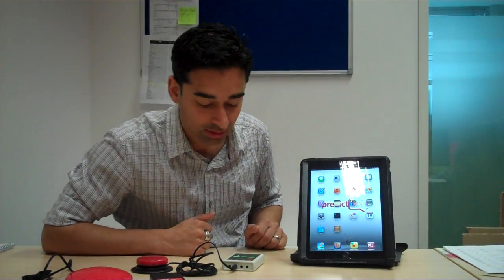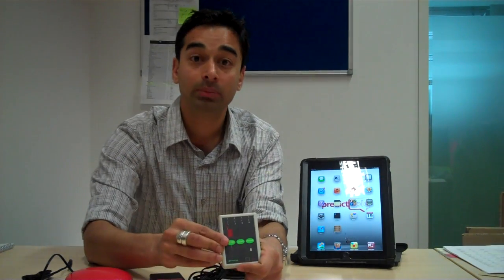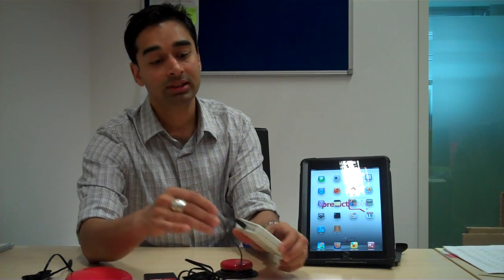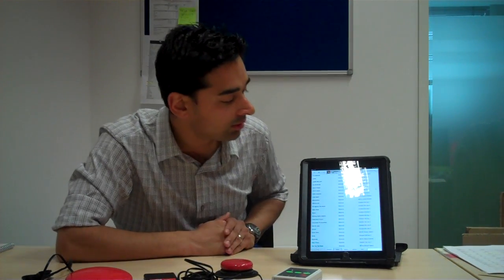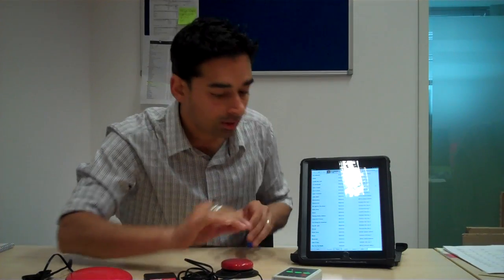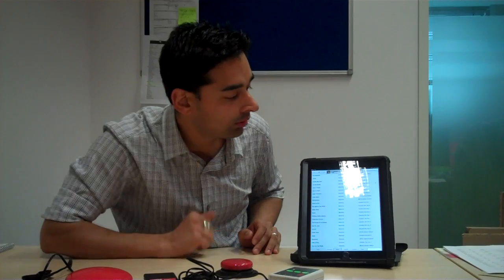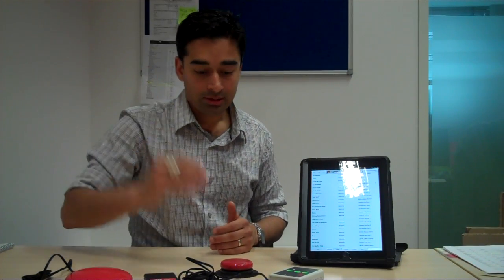Let me now show you how it works with the music mode. To go into music mode, you simply click on the music button, which is over here. As soon as that happens, you will see a green light appear. When that happens, you simply click on music and then move your port from three to one and start to play it.